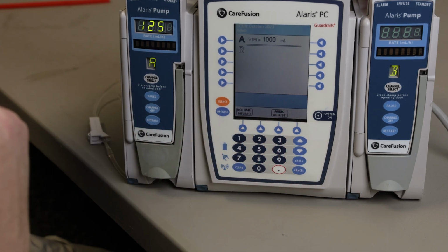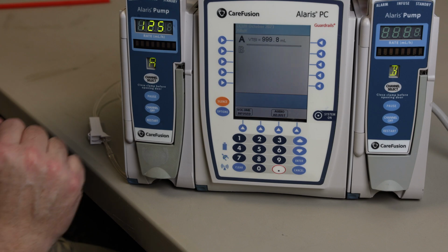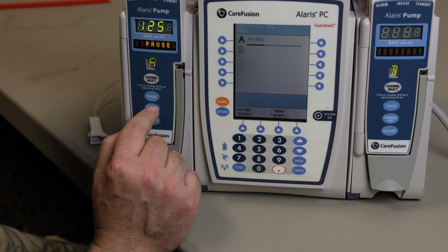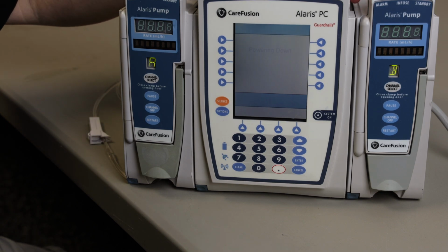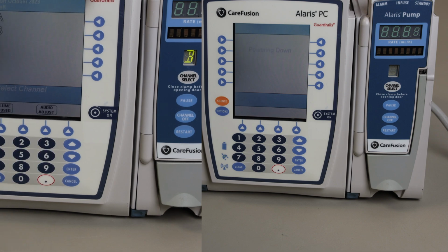Now this you could also use if you have certain medications that you know that you're not going to titrate. It's already got a set hourly rate in the referring physicians or referring facilities pump. I don't recommend using this method for starting certain drips, but there are some that it just may be easier to do like this. You can just use good solid judgment on this.